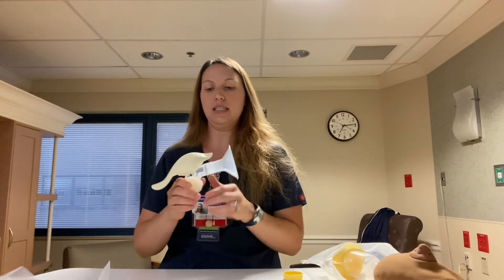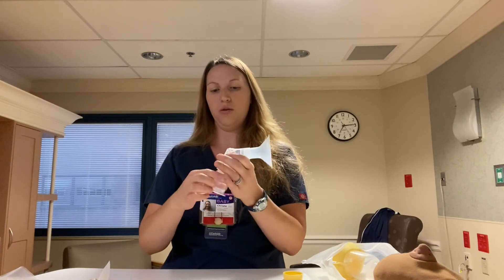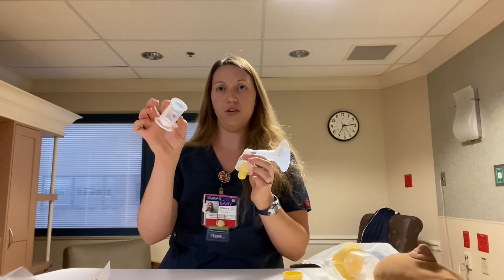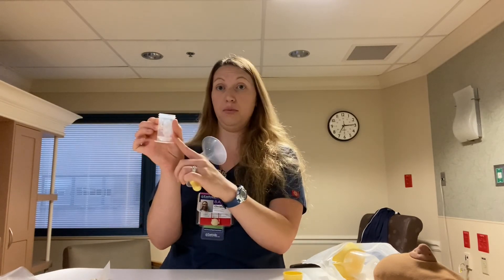To take this apart — the handle piece does not get washed. We collect or save whatever colostrum we have. You can draw it up in syringes, or if you have a little more, you can put a nipple top on the bottle and feed it directly to baby — whatever your preference is for feeding baby at that time.